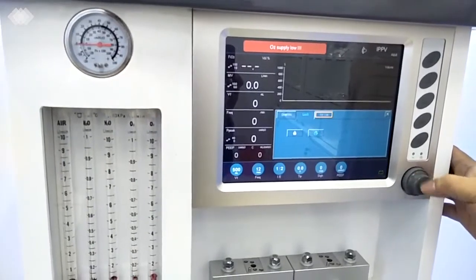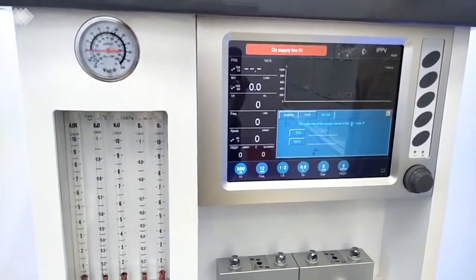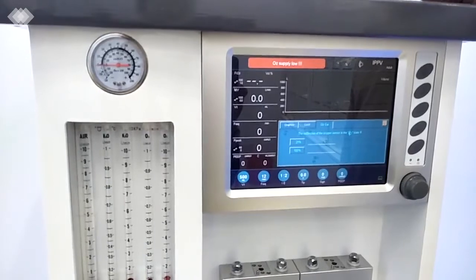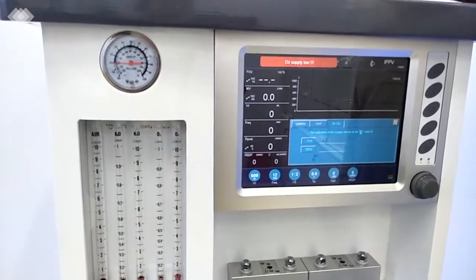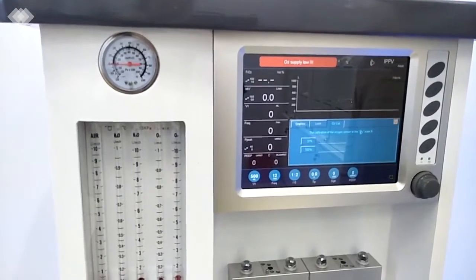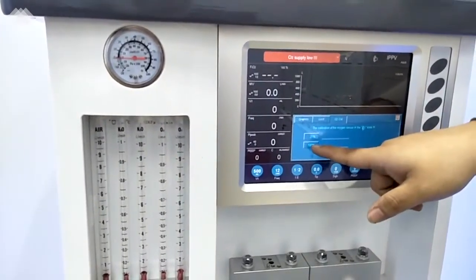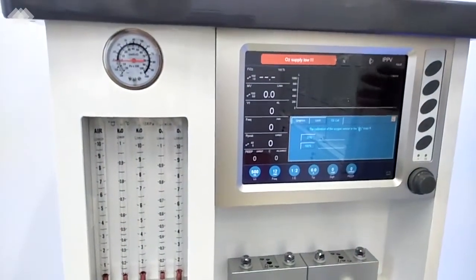And the third one here is for the oxygen calibration. For all our machines, we have the oxygen calibration. Before the machine is shipped, we do the calibration in China, in our factory. But we know that in different countries, the oxygen concentration in the atmosphere is actually different. So that's why, as I mentioned first, after you get the machine, you only need to do it one time at 21% and 100%. And also in the installation video, we have the steps to teach you how to do it.